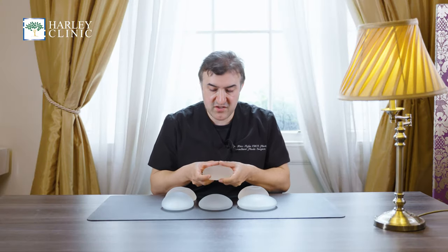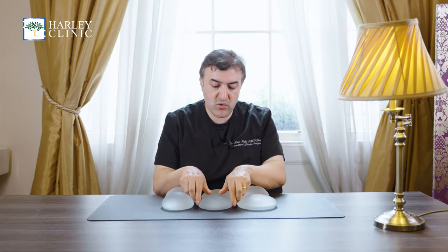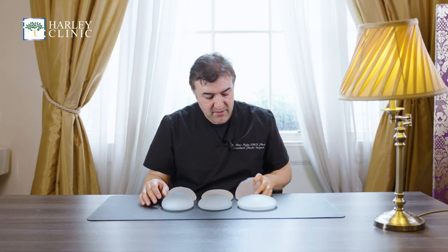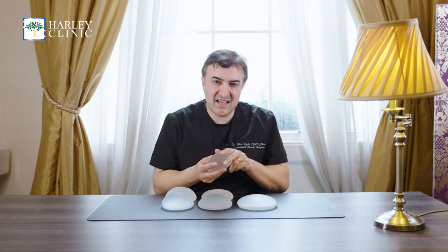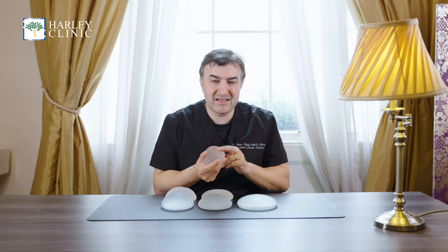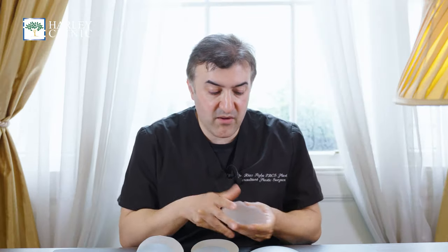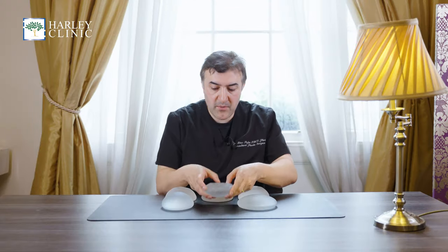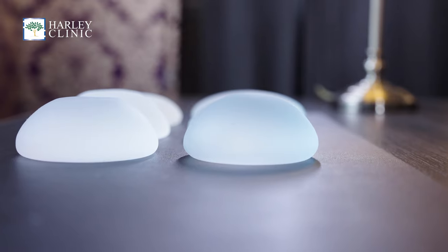You've also got texture, so you can have a textured implant versus a more nanotextured or smoother implant. And also you can have the feel of the implant — how soft it is, how well-filled it is, and how it feels inside with your hand. I often get patients to actually feel the implant because that's what's actually going to be going inside, so they need to be comfortable with how it feels.